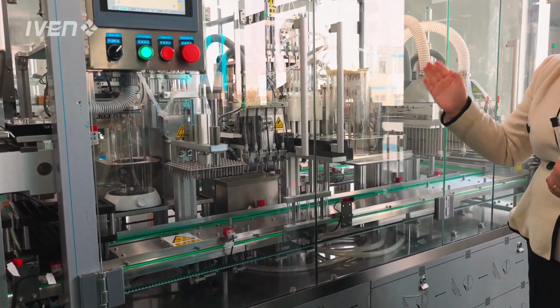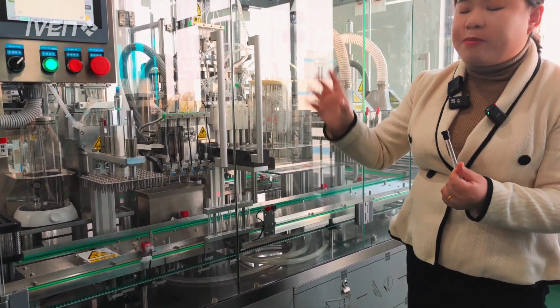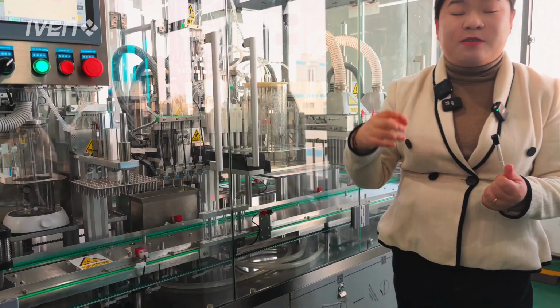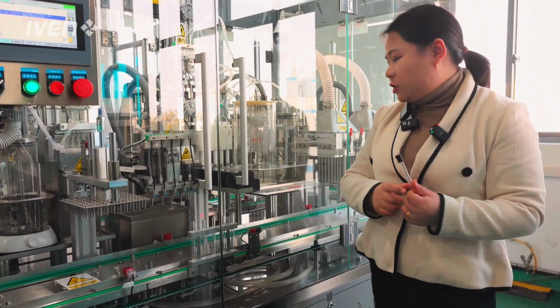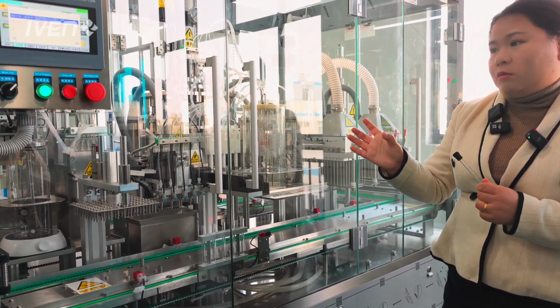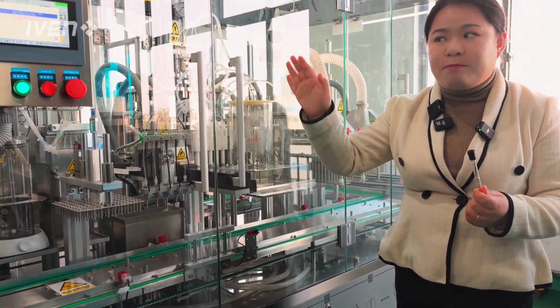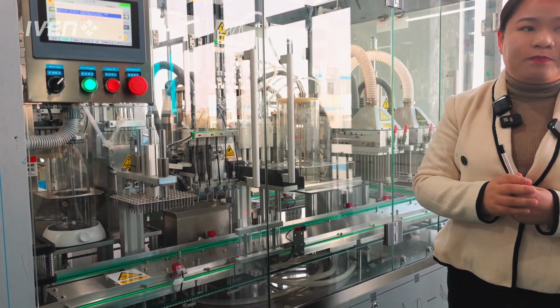So besides sodium citrate filling, we also have heparin lithium. It will be sprayed in a different station. And also we have the blood clot activator dosing station, okay? So when you want to transfer into different production of different tubes with this line, it's no problem. Also, all kinds of chemicals can be handled in this small machine.